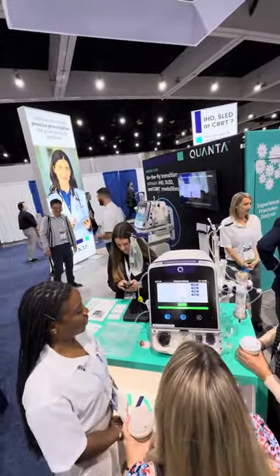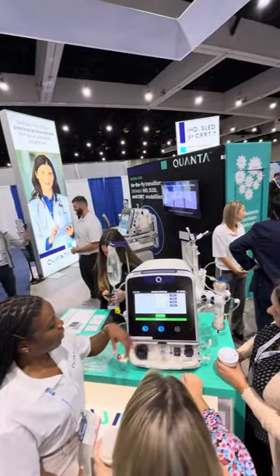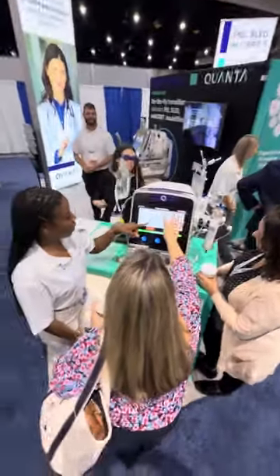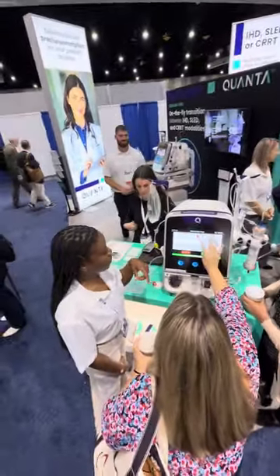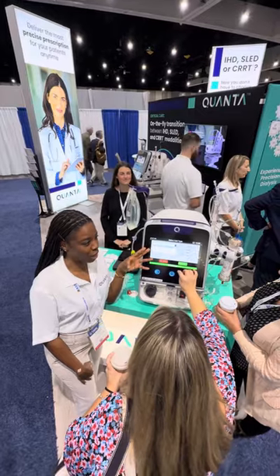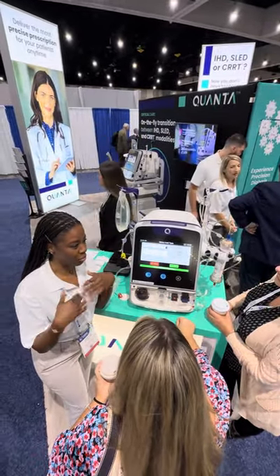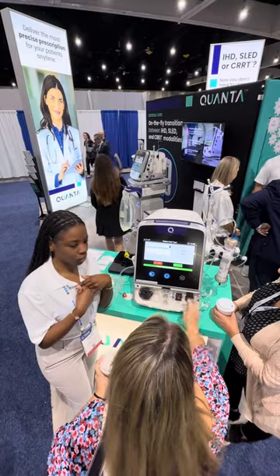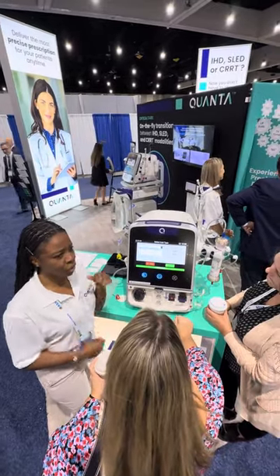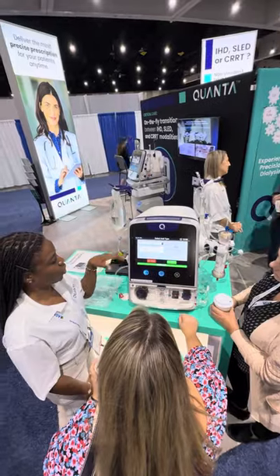So you can hit over there to confirm. Then your fluid type — you can change there. So here we have different options, but we have a super user option where there are tons of values you can pick. For example, our calcium is really at 2.5. You can put whatever you want in there, but these are the standard ones.